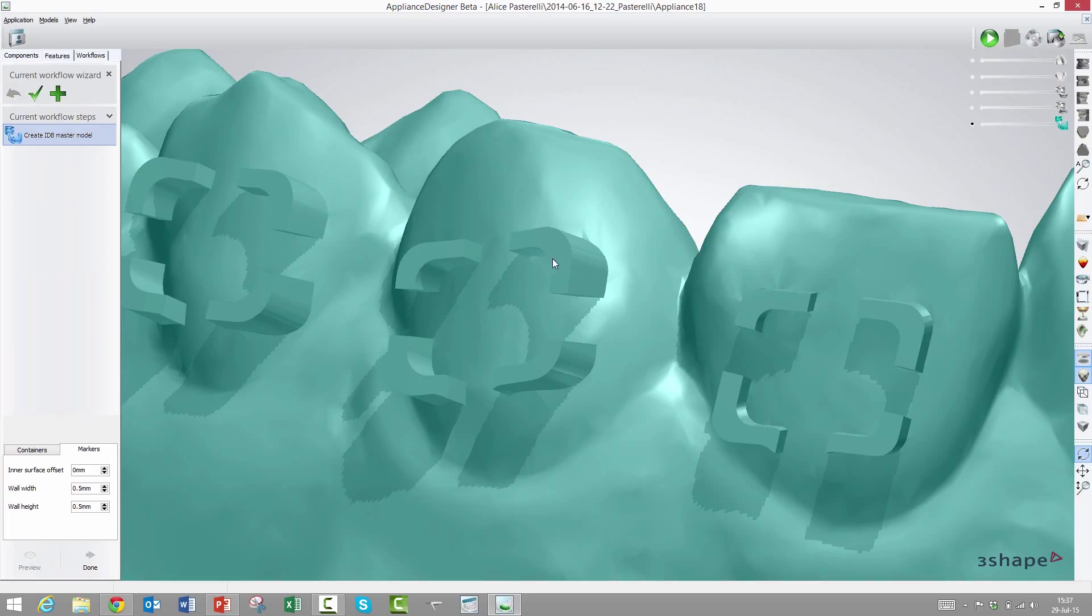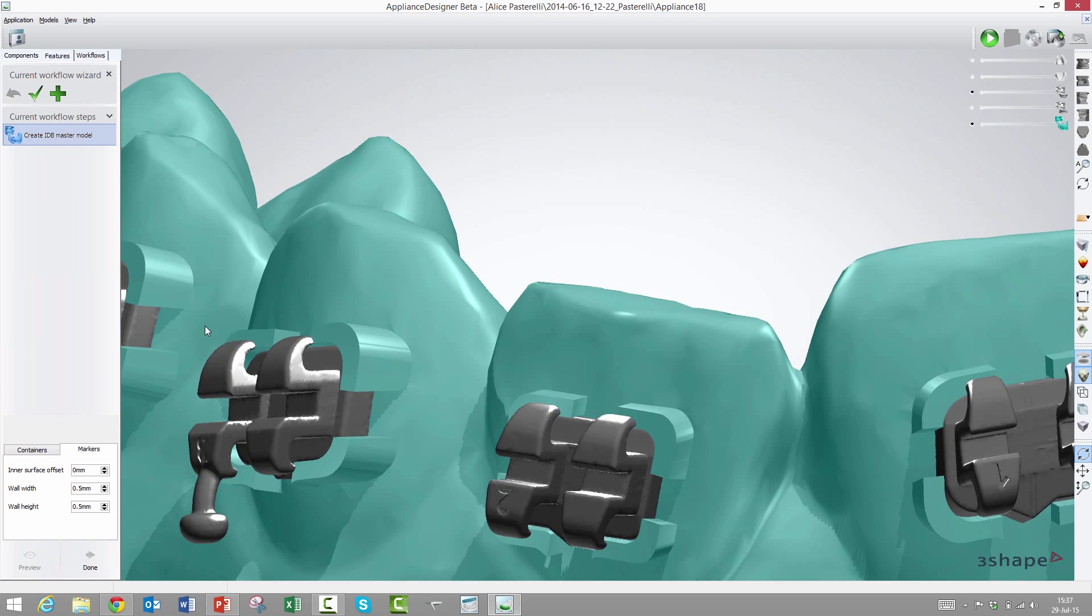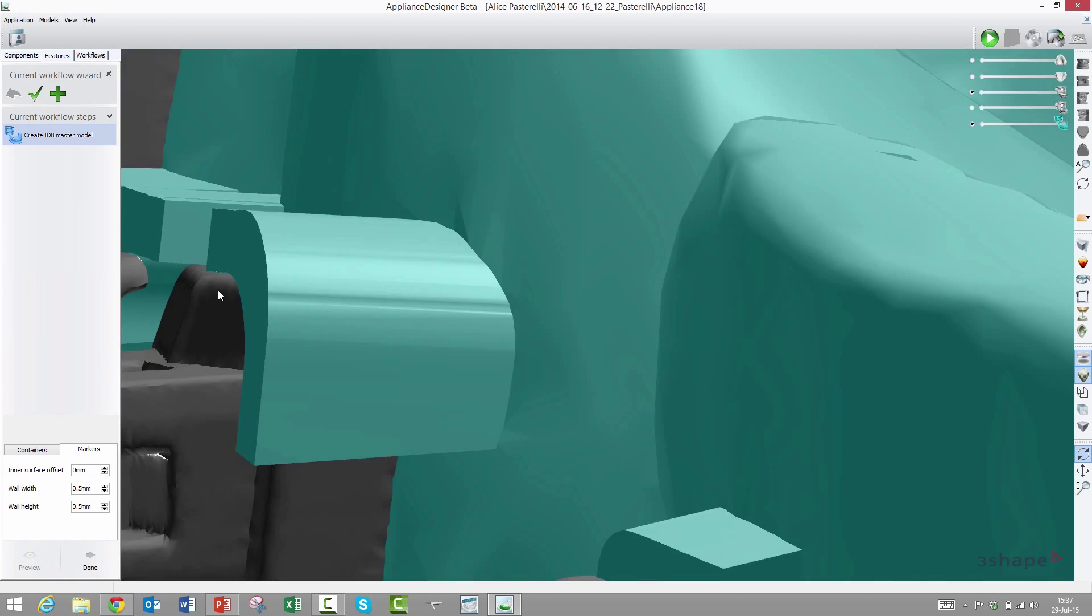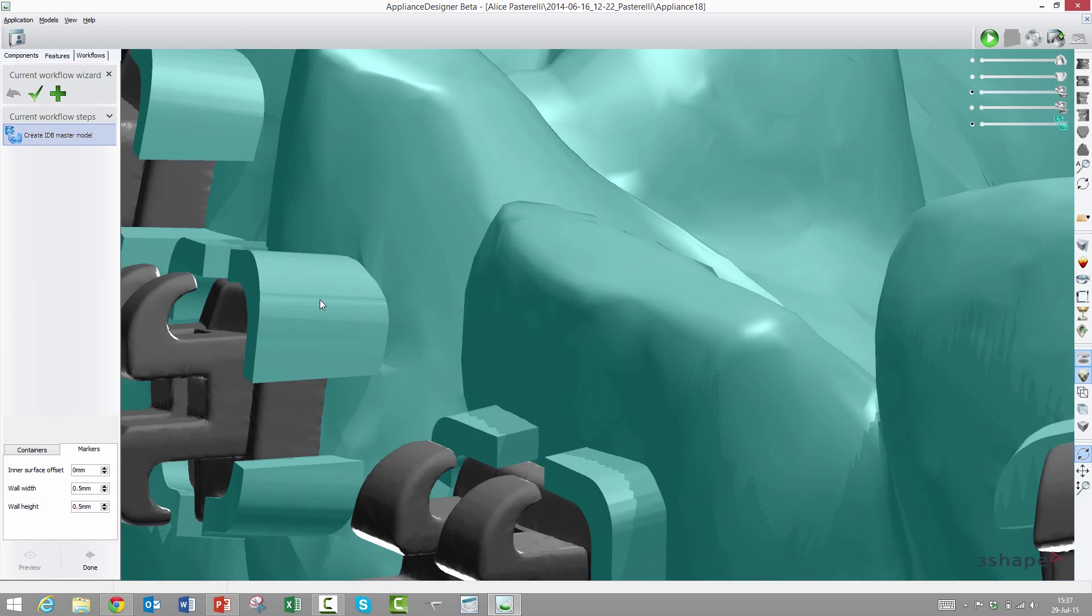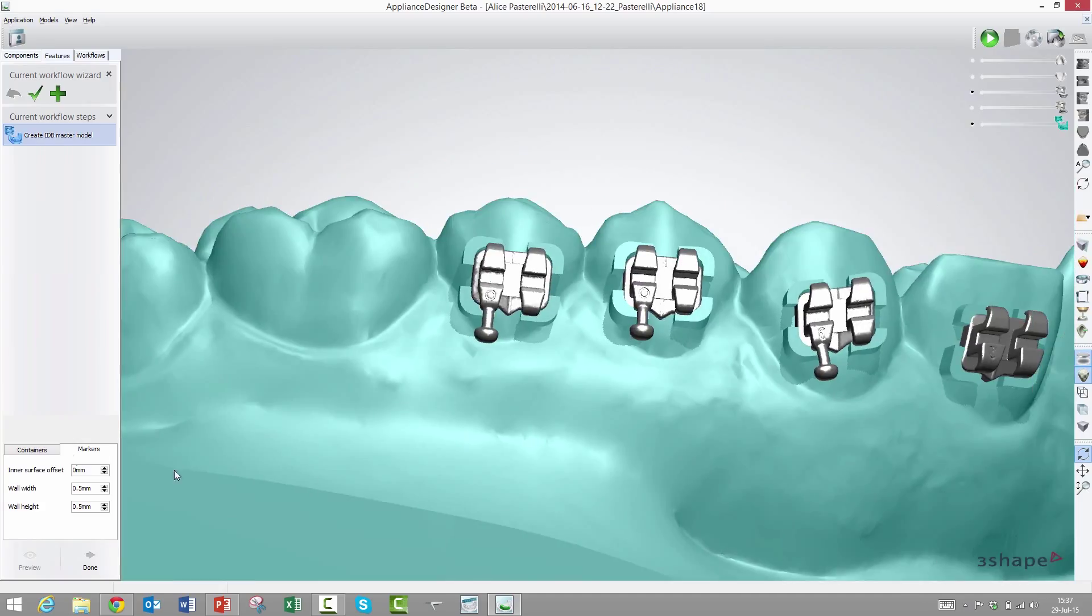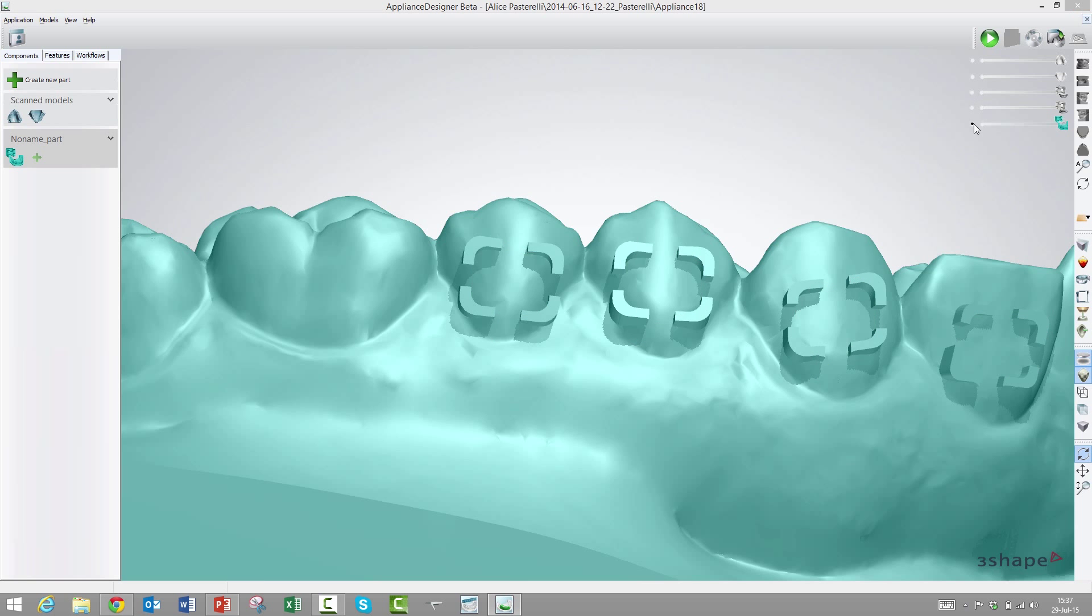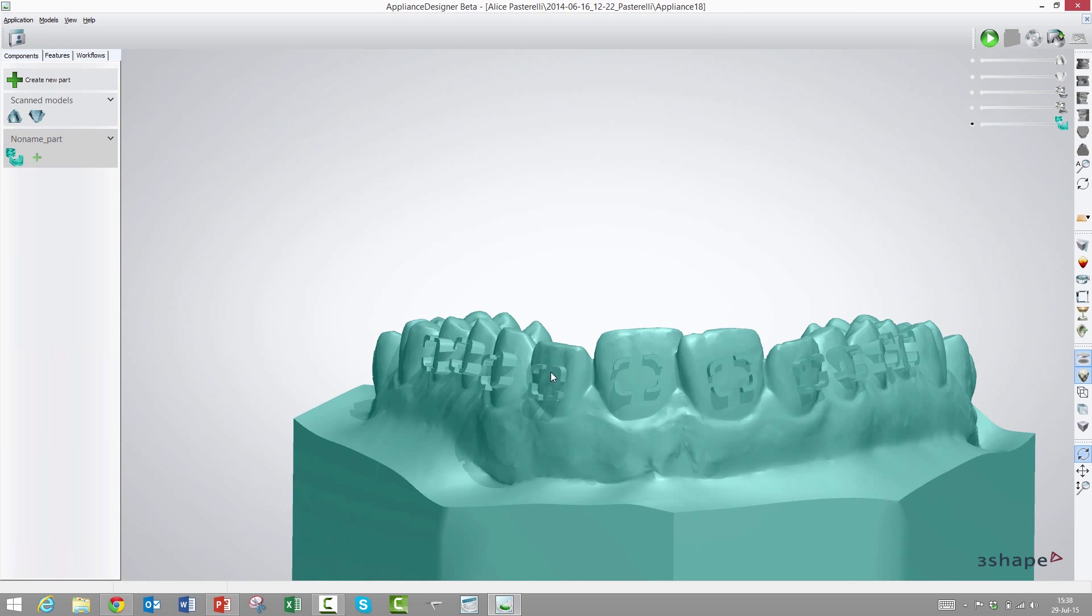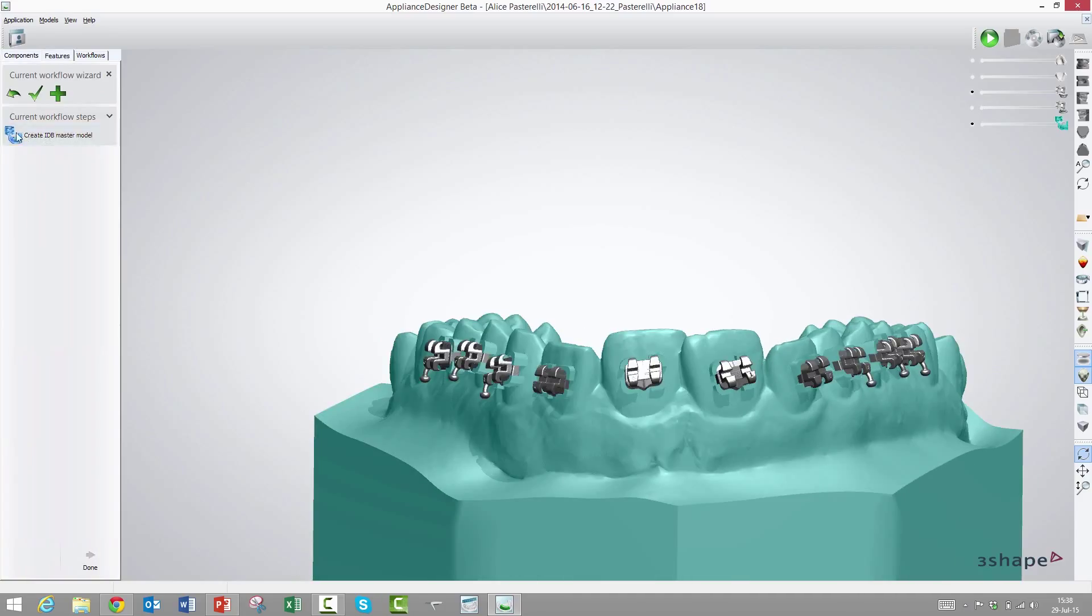The next ones are wall width and height. The height could be useful because if we have a bracket with a very low profile where the wings are very close to the tooth surface, maybe we will need to reduce the height to make sure they don't collide. You can set them parametrically down here. That one is ready to export. You could print this, put the brackets in, protect the wings and hooks with silicone, and then vacuum press or thermoform on top of that.